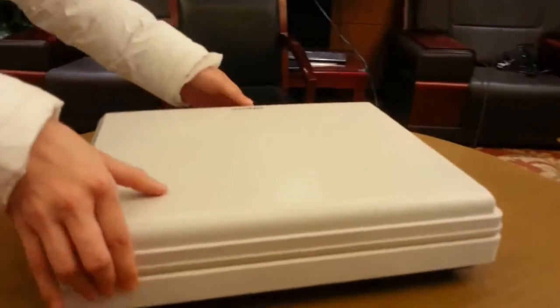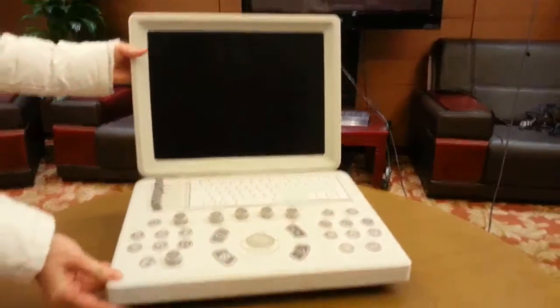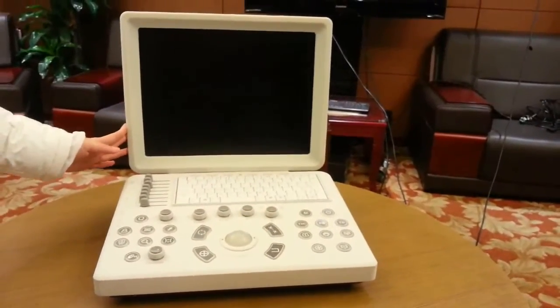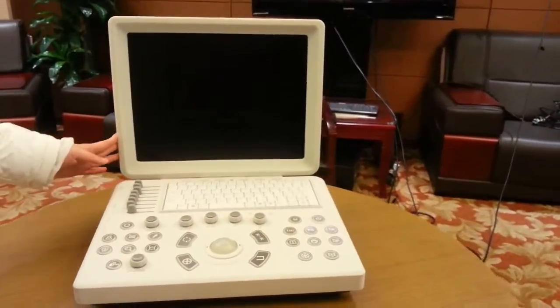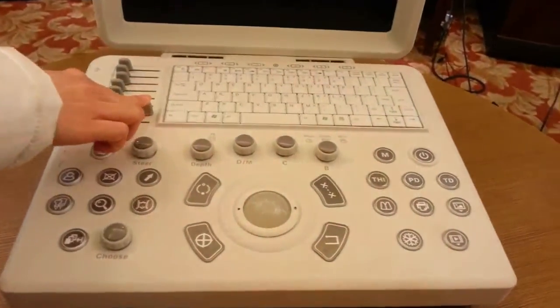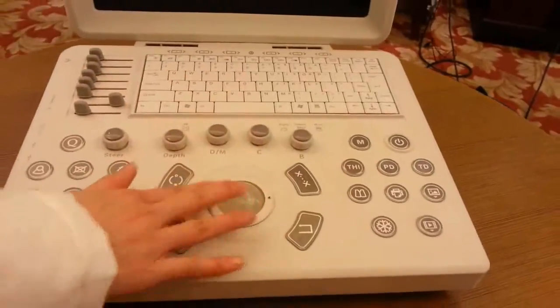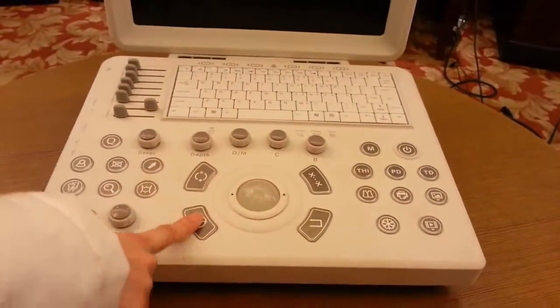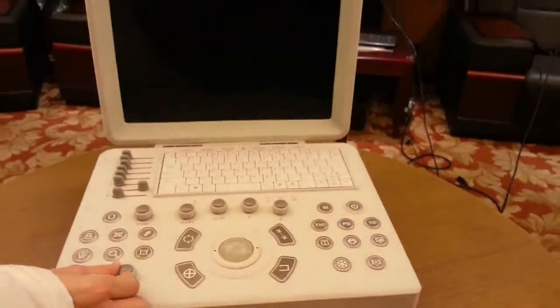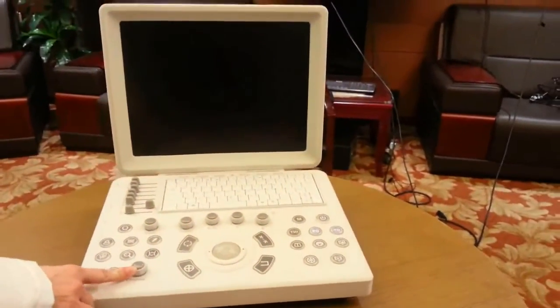Let's open and explore it. The screen is a 15-inch LCD screen. About the control panel: this is the TGC sliders, PC keyboard, and trackball. The keys are backlit. The knobs can be pressed and rotated — they are multifunctional, with different uses in different situations.